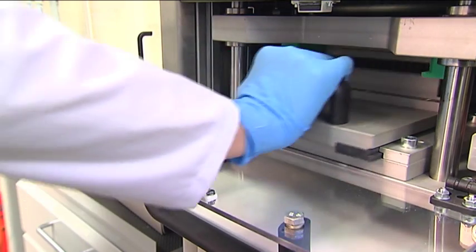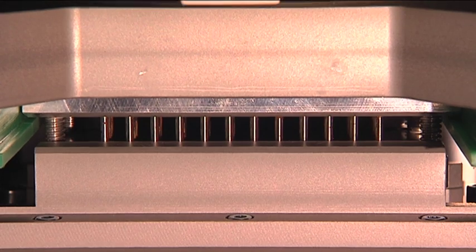Using an opening device, all 96 samples are then opened simultaneously.